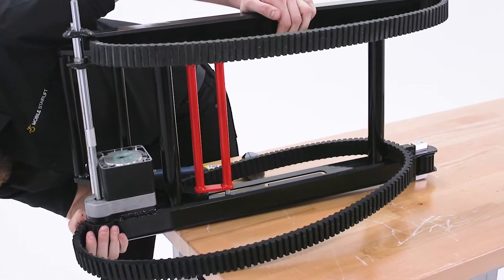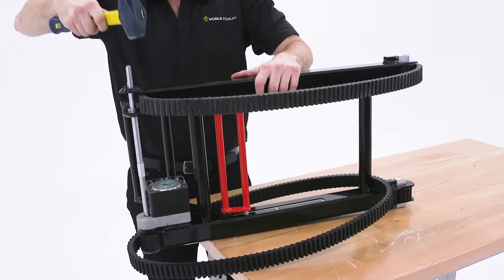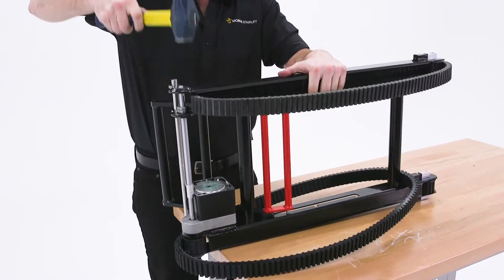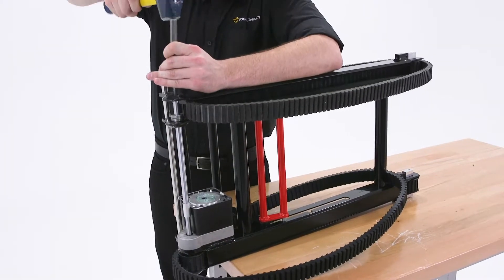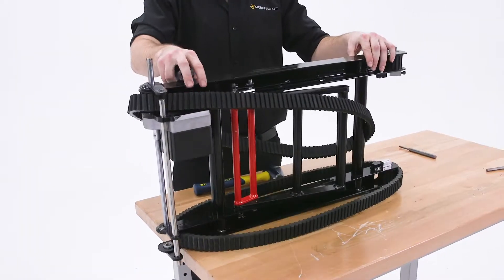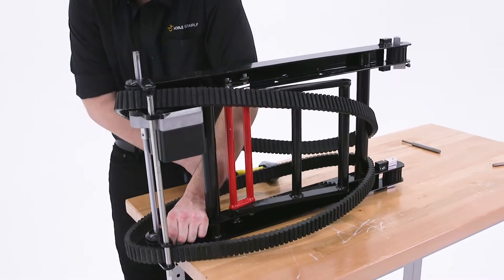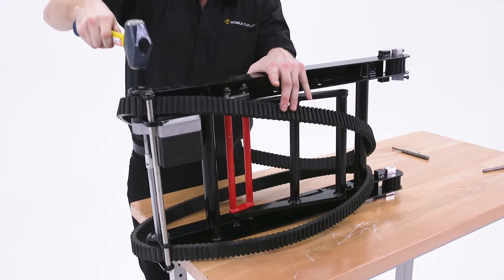To replace the first wheel bearing, slide it under the track and into the housing and line up the holes in the housing with the hole in the center of the wheel. Now hammer the upper side of the axle to drive it through the lower part of the housing and wheel. Continue hammering the axle until it has been driven beyond the outer edge of the housing and has enough space for the upper wheel to be added. Slide the wheel under the track into the housing and then flip the track so that the protruding end of the axle is facing up. Hammer the axle until it is once again flush with the outside edges of the track housing.